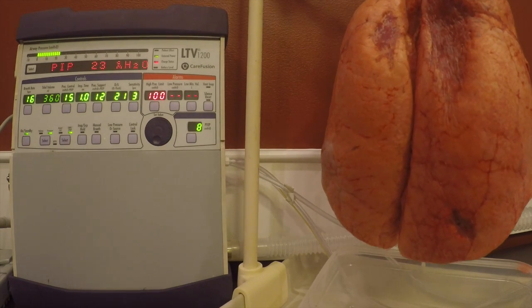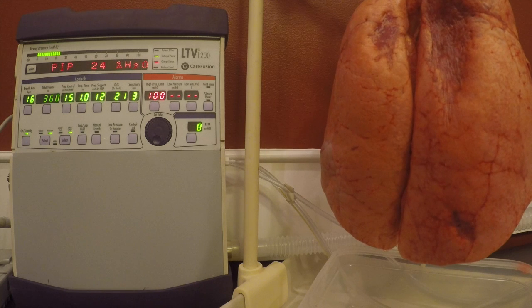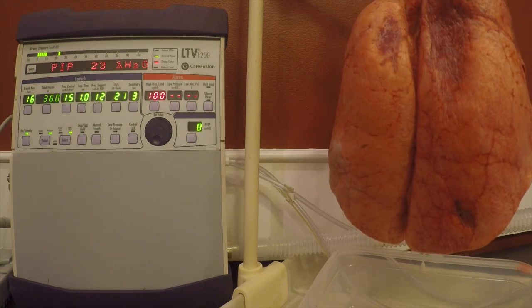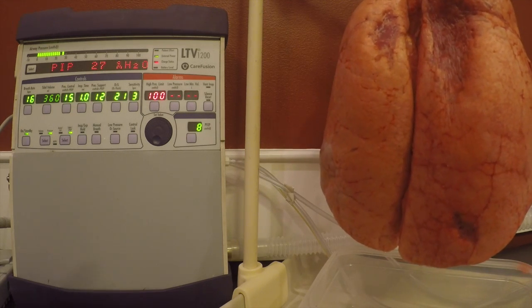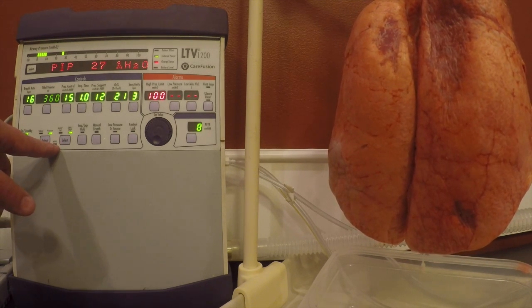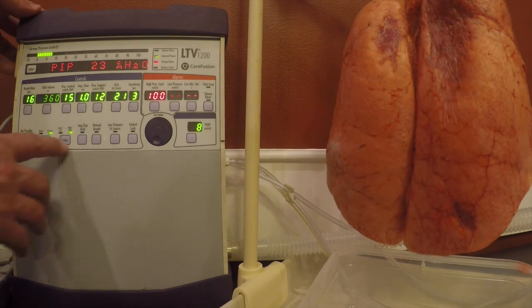In this video, we're going to demonstrate how to set up noninvasive positive pressure ventilation with BiPAP on the LTV1200. If you've checked out the other videos on the Revel, you know that the startup menu is where we access the NPPV mode. In the LTV1200, accessing BiPAP or CPAP is actually done with the ventilator turned on, and you can see our NPPV button, or light I should say, right here. We're going to access this by hitting our select button once. You can see it blink.